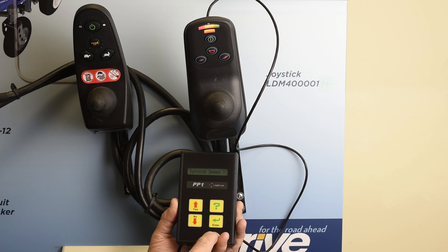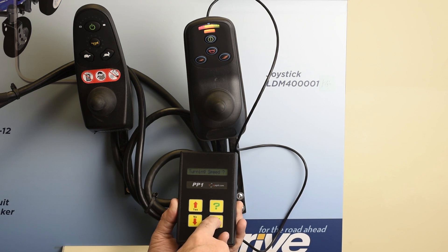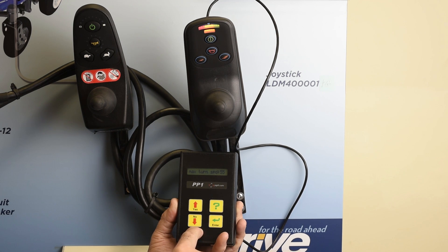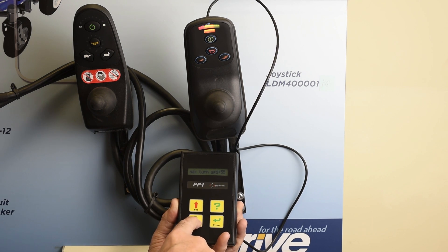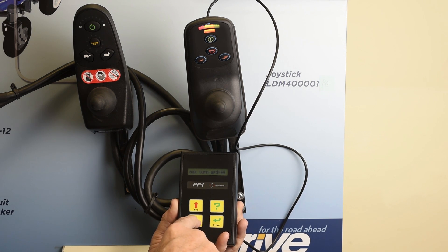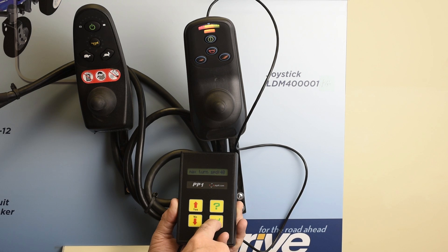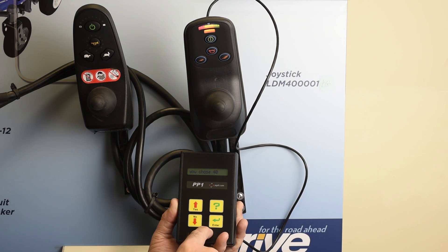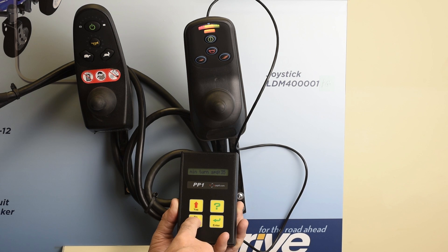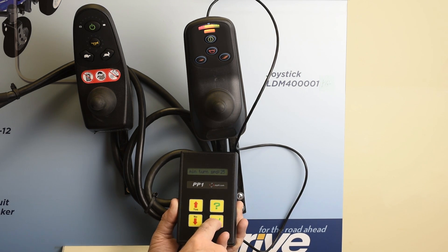Turning speed — we also want to make turning a little bit slower; otherwise it could whip around and hit somebody. The maximum turning speed is 55, which is kind of high, so let's go down to 40 and hit enter. The minimum turning speed is 35, which is also kind of high now, so let's go down to 25 and hit enter.